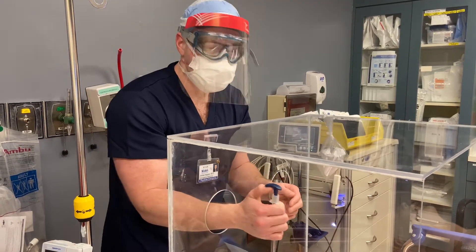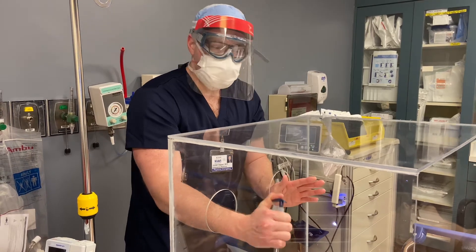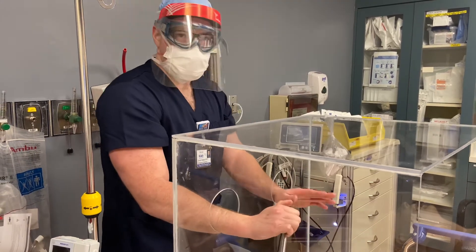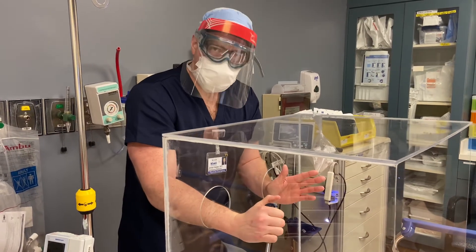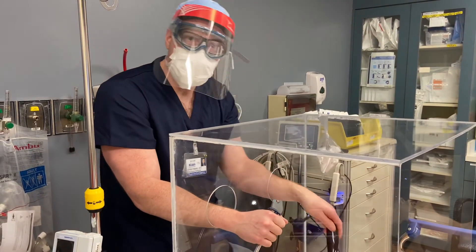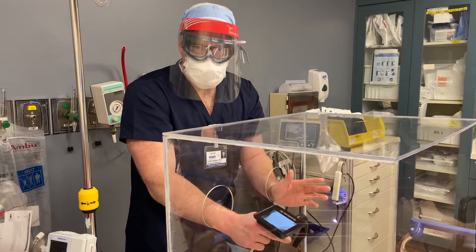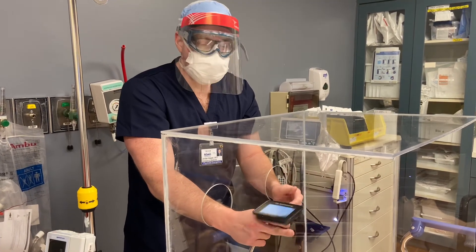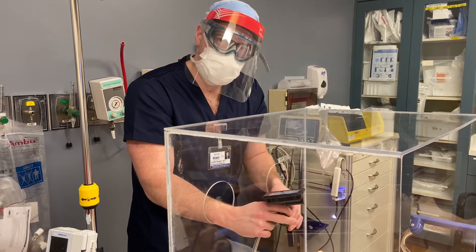If you do those four steps, you'll see where people mess up — one of the major issues is getting the tube into the patient's mouth and losing the tip. But if you really forget intubation and focus on the tip of that tube, I think you'll love the GlideScope. It's super fun to intubate with — I feel like I'm driving a boat. You've got the joystick and can really maneuver it well. Give this thing a try, especially during these corona times.